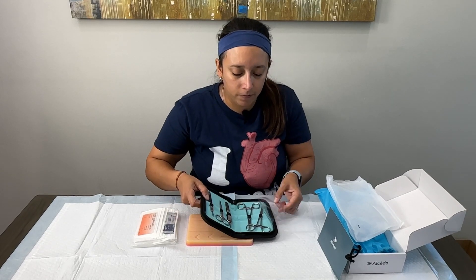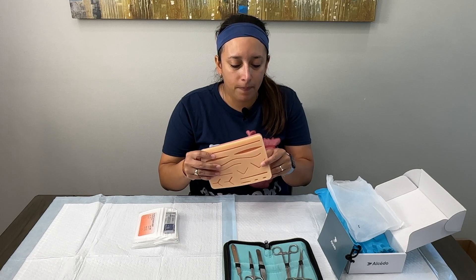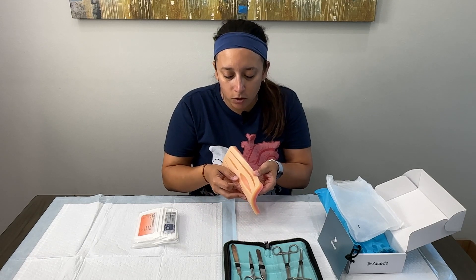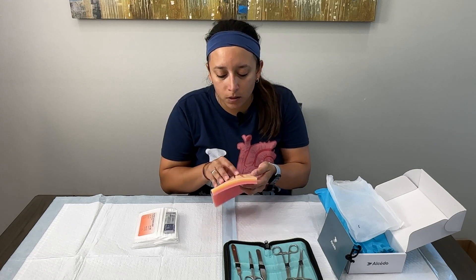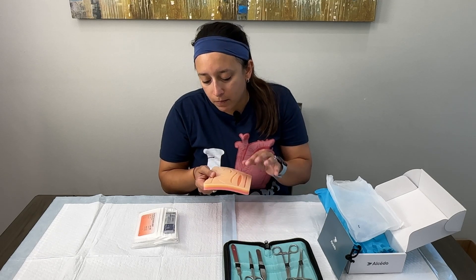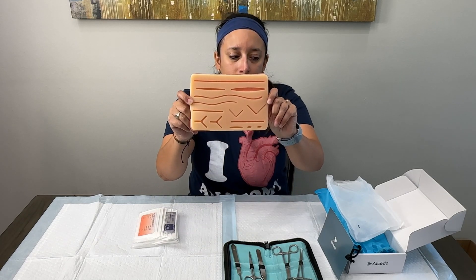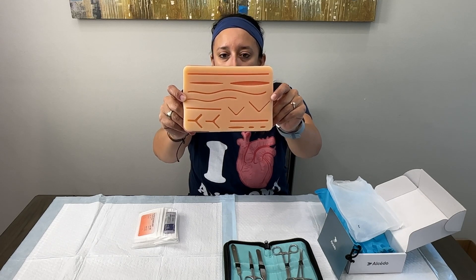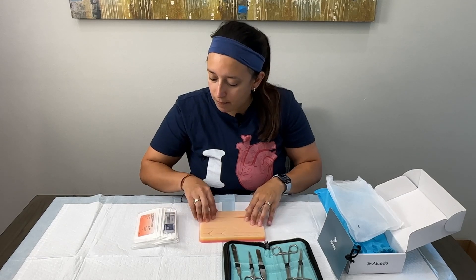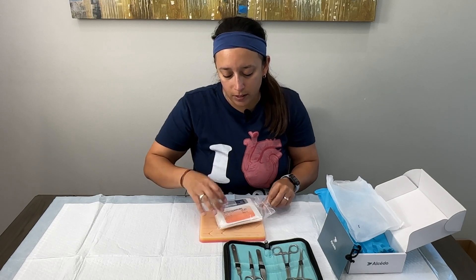We have a silicone pad and it's a pretty thick pad. One thing I really like about it is that it actually tries to replicate the epidermis, dermal, and sub-q layers — there's a change in coloration from the epidermis downward, which I like. It has a nice variety of different lacerations and things you can practice suturing up, and it seems like a good quality silicone base.